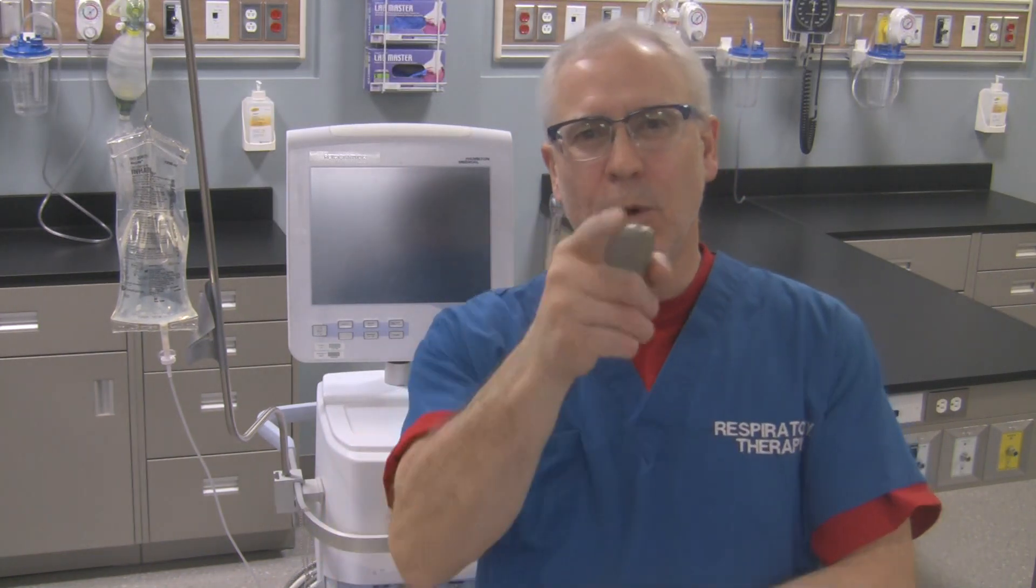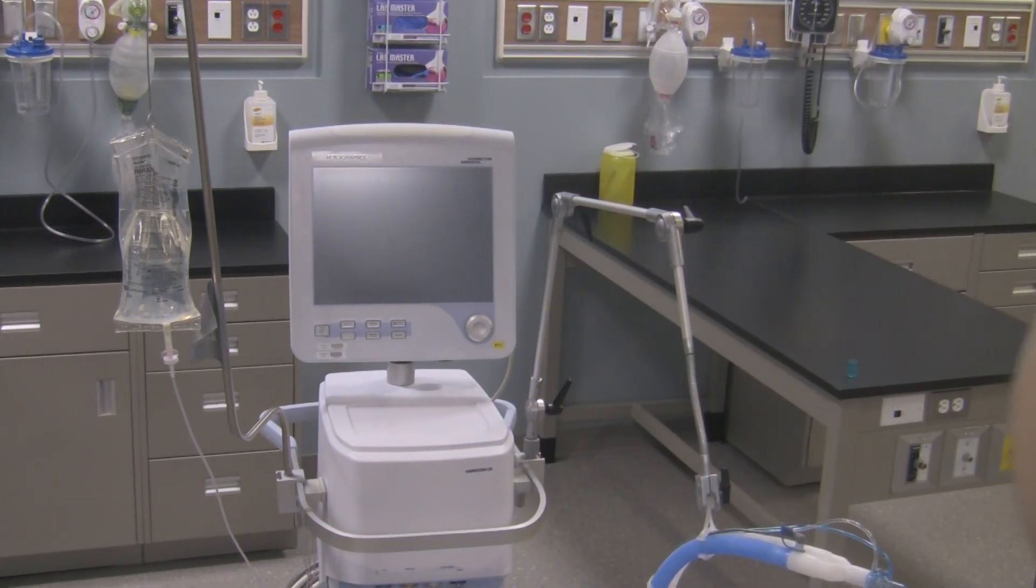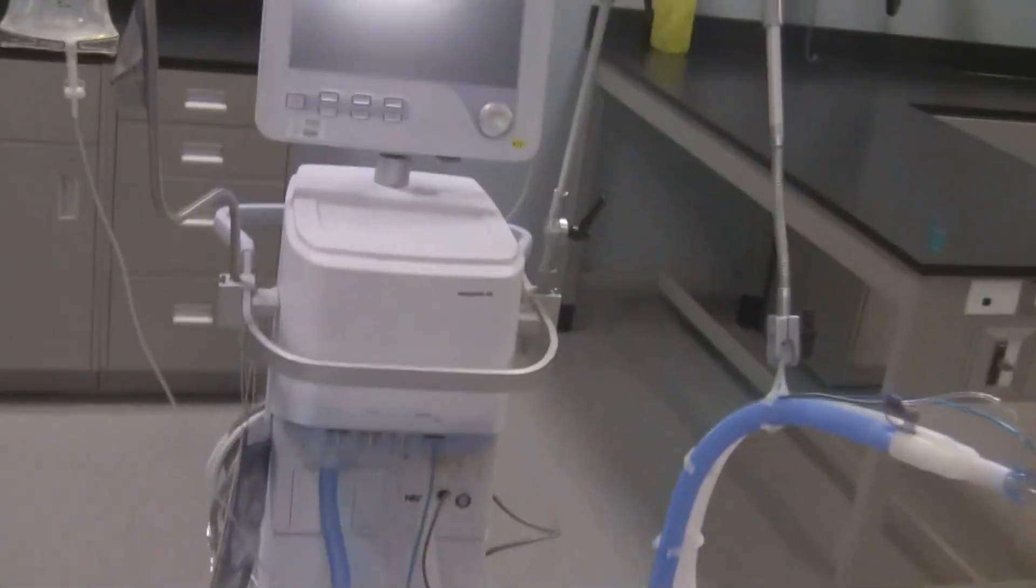Hi, George here. What we're going to do today in this video is I'm going to show you the external features that you'll find when you're looking at the Hamilton G5 ventilator if you happen to have one where you work or you might be getting one. I'll take the camera off the tripod and let's start looking at the ventilator.